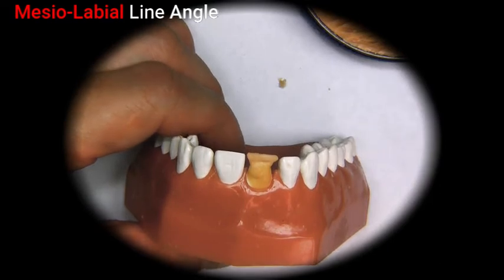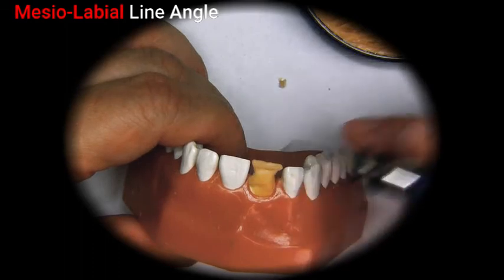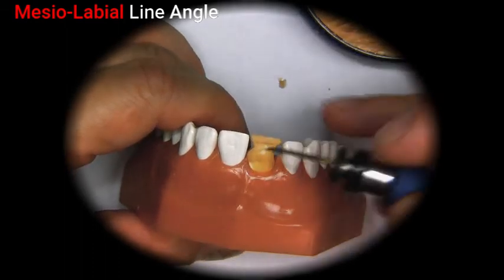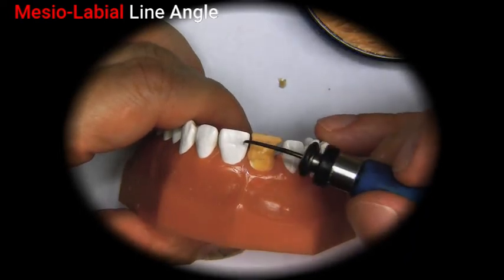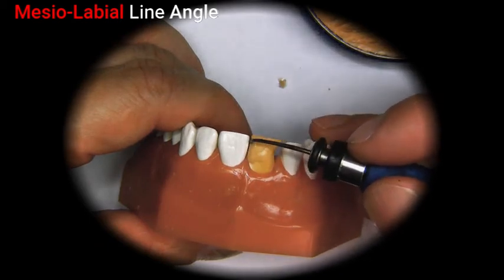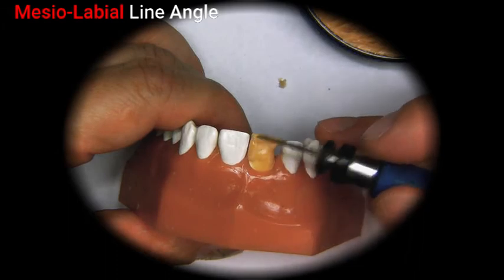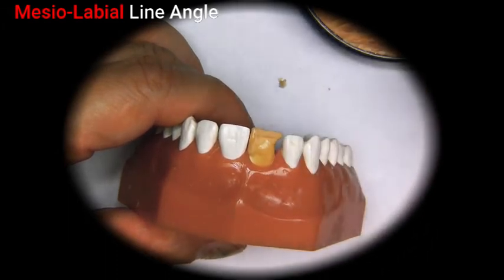The next portion we wax is the mesial line angle. So we're going to try to match the adjacent tooth. So what we're trying to accomplish here is to mimic, or wax, the tooth right.